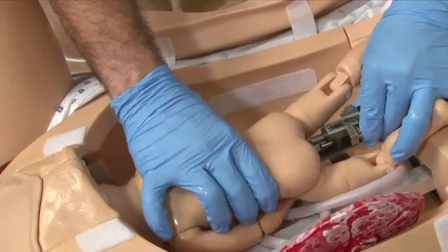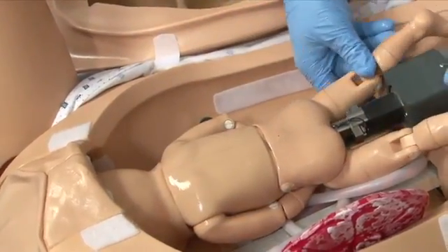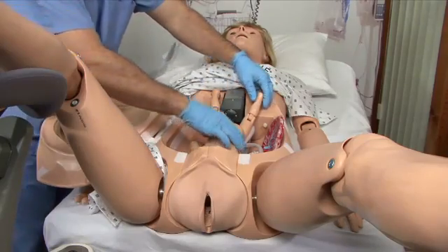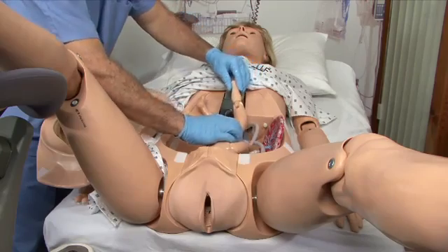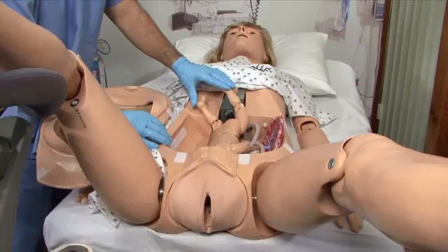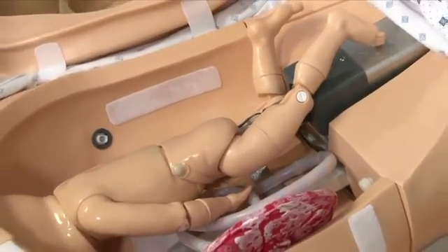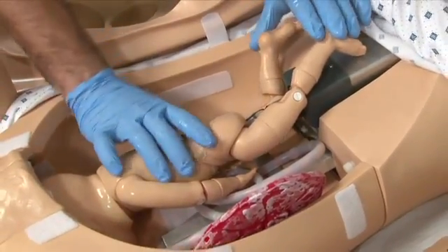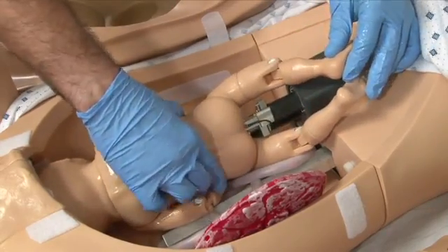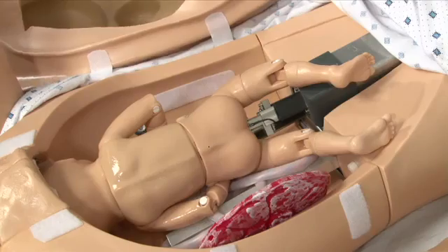To connect the fetus, first line up the birthing arm connectors and the ports on the bottom of the fetus as seen here. Once connected, the locking mechanism will actuate and secure the fetus onto the arm. Manually rotate the fetus to face the LOP, ROP, ROA, or LOA delivery position as the starting point. For this example, the fetus will be set to LOA, or left occipital anterior position.